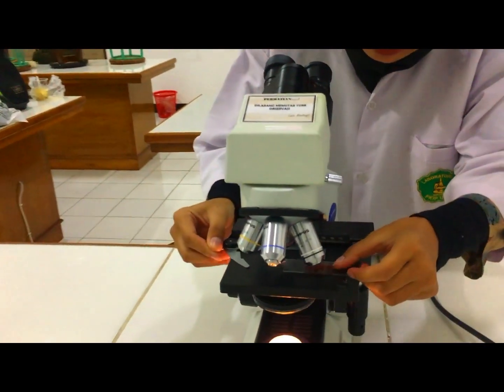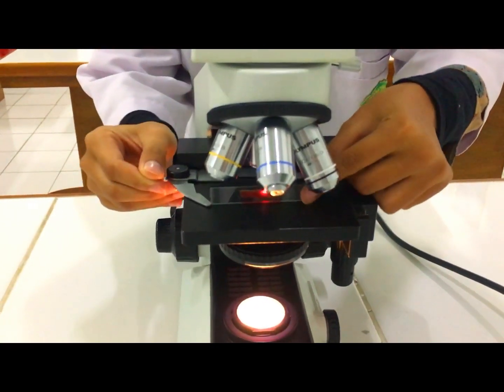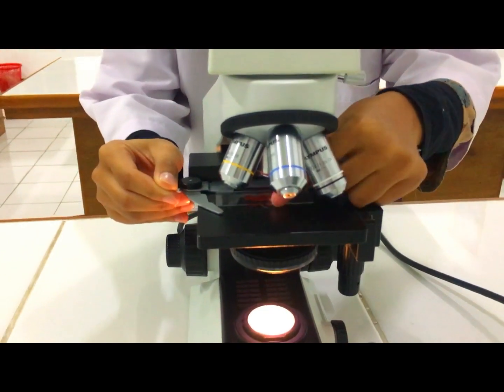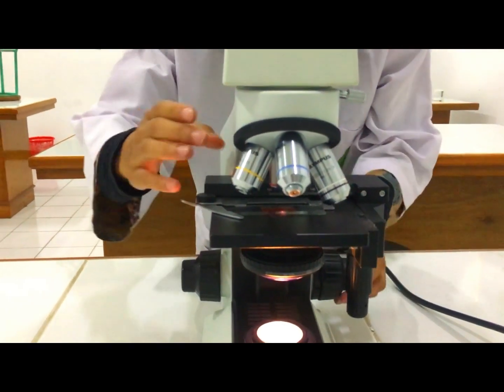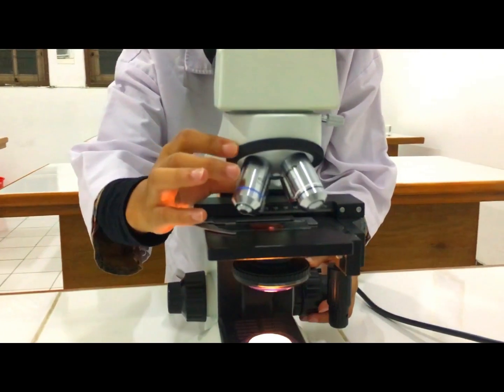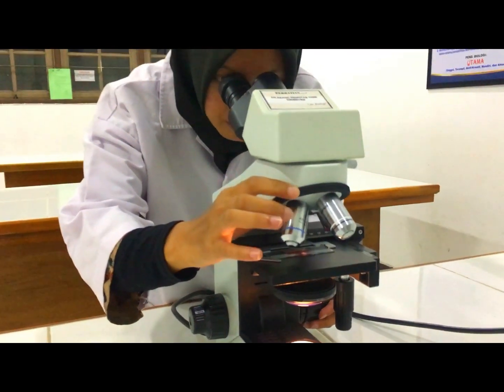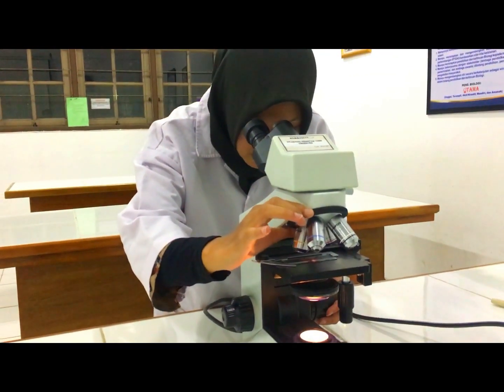Langkah selanjutnya yaitu untuk mengamati bentuk-bentuk leukosit yaitu dengan menggunakan mikroskop. Tetapkan hapus darah dalam mikroskop, kemudian amati dengan perbesaran tertentu sampai muncul bentuk-bentuk dari leukosit. Terima kasih. (The next step is to observe leukocyte forms using the microscope. Place the blood smear under the microscope and observe at a certain magnification until the leukocyte forms appear. Thank you.)